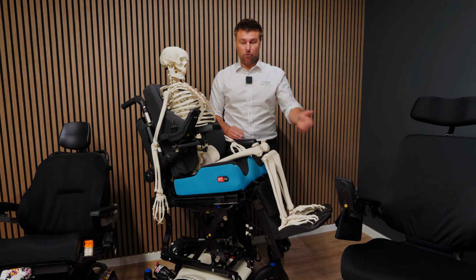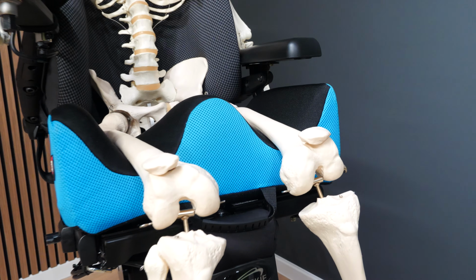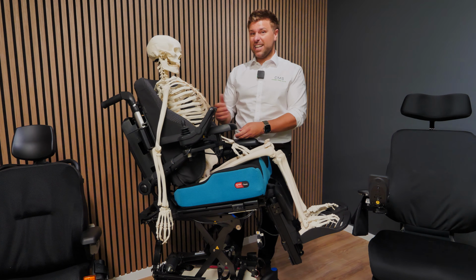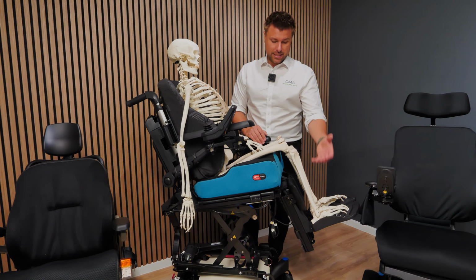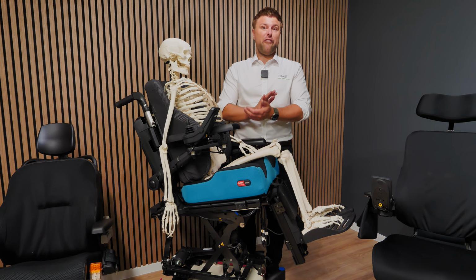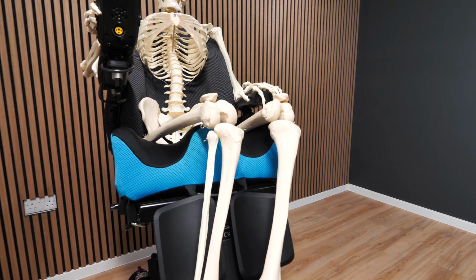To make sure that you're in the optimum position. The reverse of it, if you were to have the foot plates too low, means there'll be too much pressure going through the upper leg, which can lead to circulation problems. And again, a similar effect with the pelvis potentially coming forward. You could get numbness and bad circulation. We want to get as much reasonable weight through the feet so we can offload the pressure on the lower part of the body.